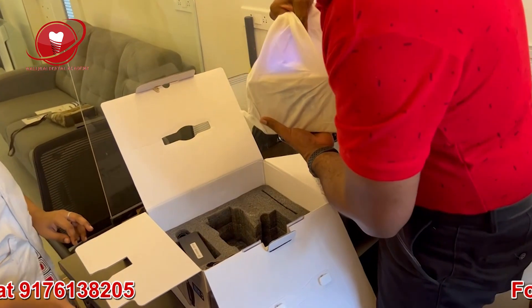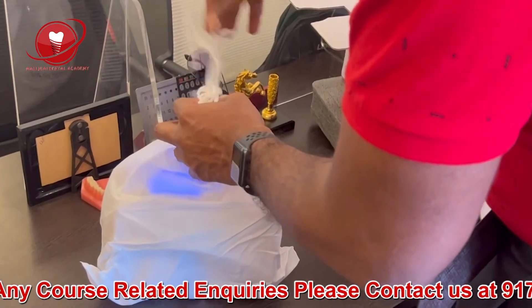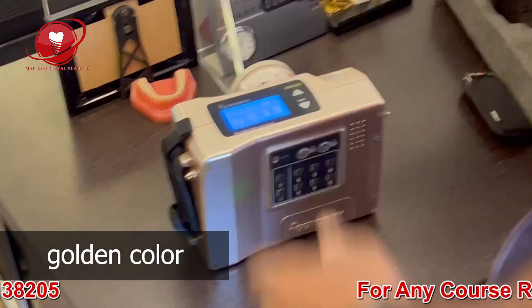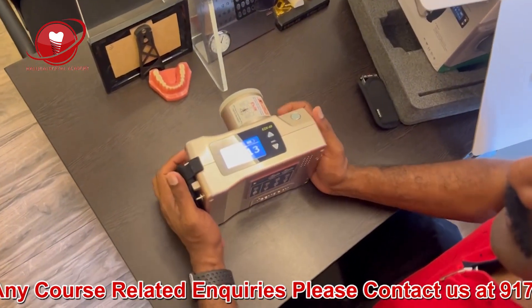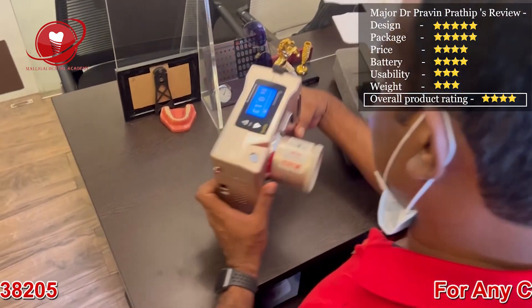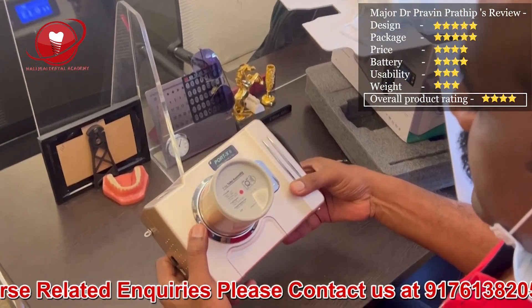The battery is kept inside the unit. The hand touched it mistakenly and the light came on. Let's get the unit out fully. Here it is — it's a golden color. The company says it comes in only one color. It looks pretty solid. There's a Unicorn seal — they are the authorized dealers for this product in India. You can see the model name, tube name, focal spot, product name, serial number, and wattage — everything is written nicely on the label.